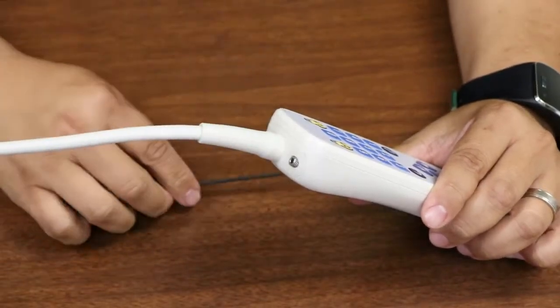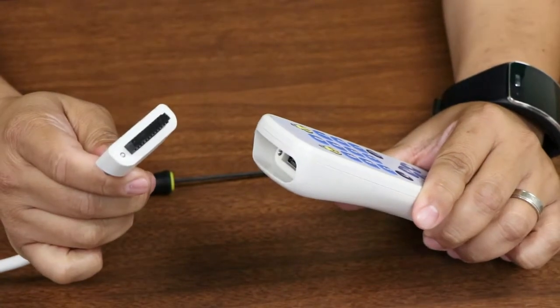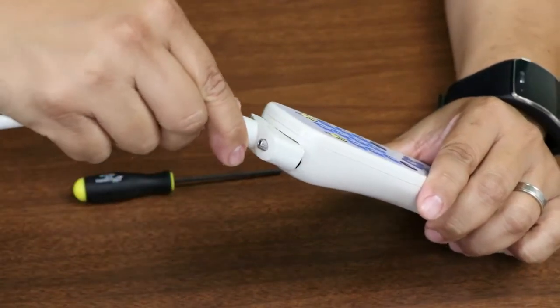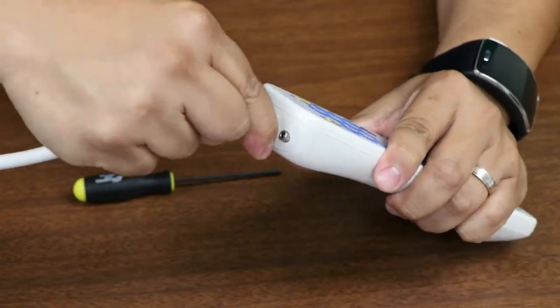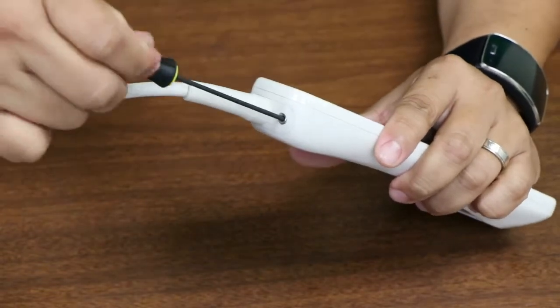Using a standard 3/32 inch hex wrench, remove the cable like so, safely detach the cable from the pillow speaker, slide in the replacement cable and secure it in place. The unit is then ready to go right back into service.